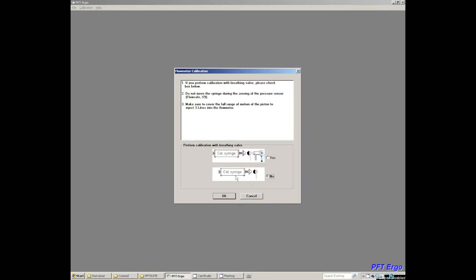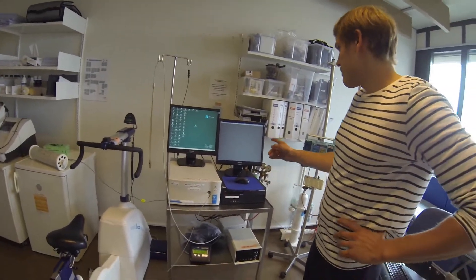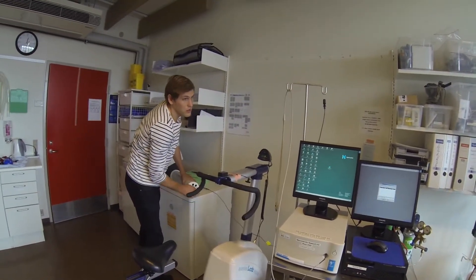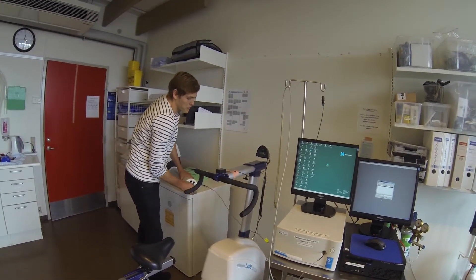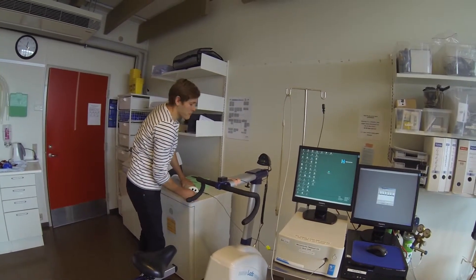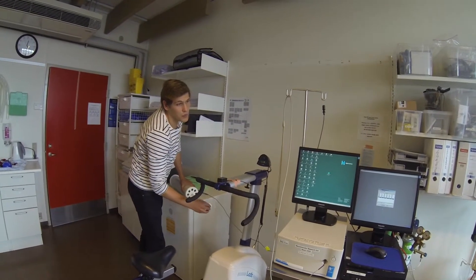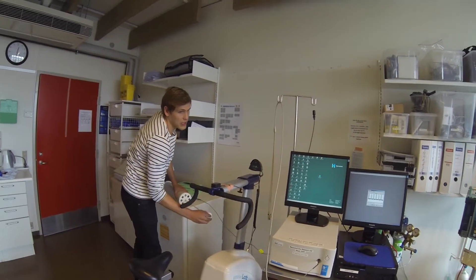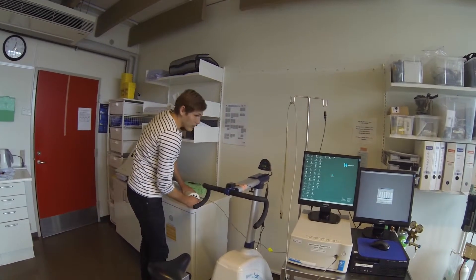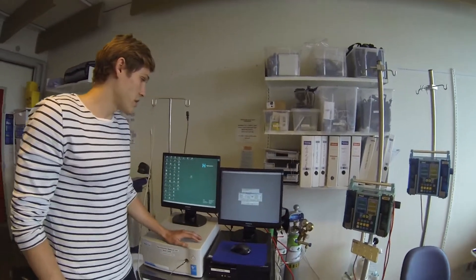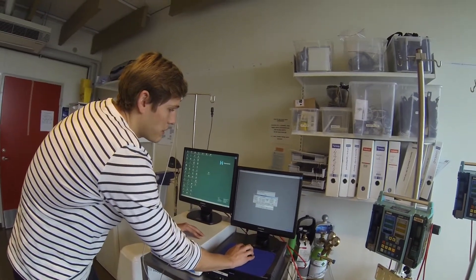We can see we don't have a breathing valve on, so we just do the normal calibration syringe here. Wait for the calibration window to open up. Now you just make repeated inspirations and expirations — you should do about ten. Make sure that you get the clicking sound, so you make the movement all the way back and forth. Again we have calibration results here and they are also within acceptable value.